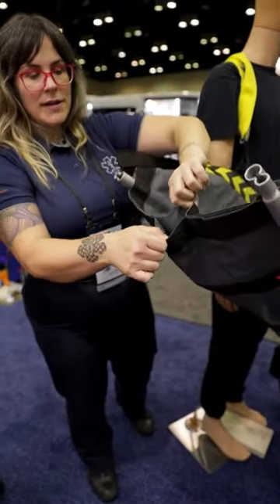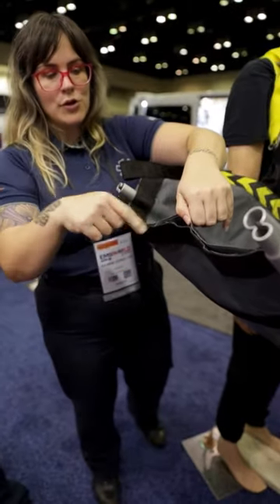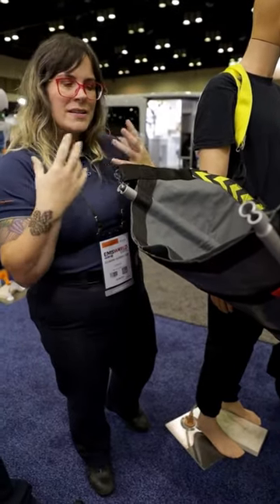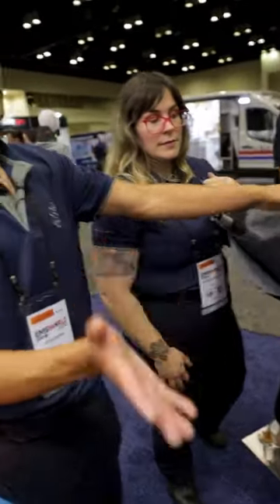There's a little pocket in the back — it's a magnetic pocket — and the poles go in there when stored. You can also put a pillow in here for an older patient who has kyphosis and whose neck is pushed forward. Or you can store your sheet in here, because you should always have a clean sheet in your device.